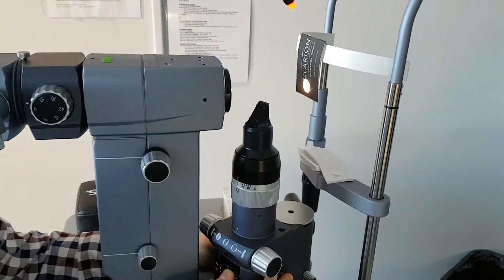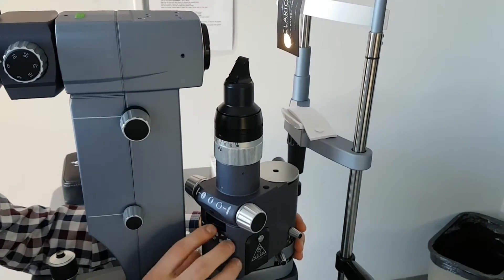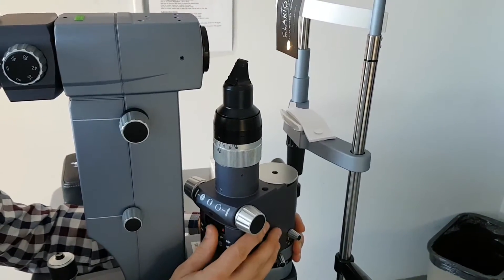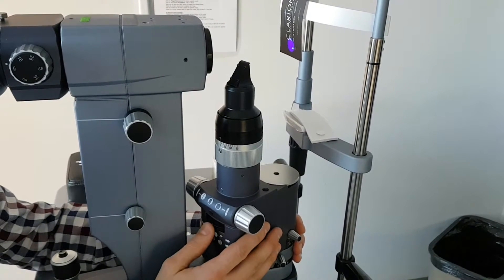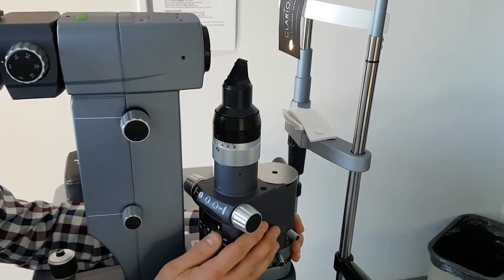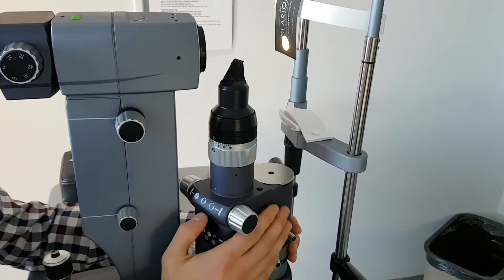These two wheels, the bottom one is a filter. As you can see, there's the green filter, the blue filter, and then no filter.